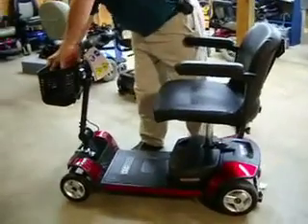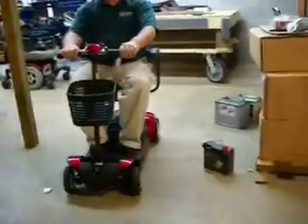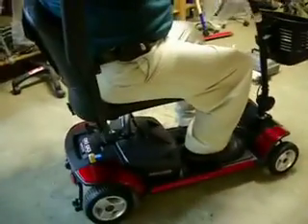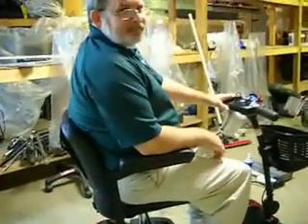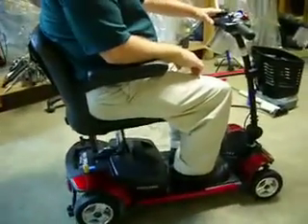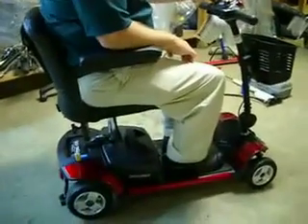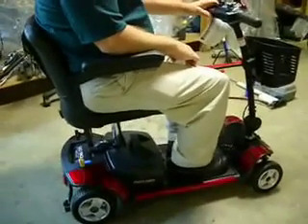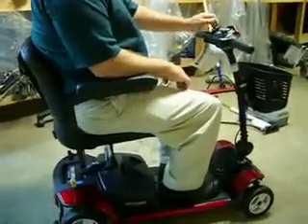So you've just seen us break down a Pride Mobility Go-Go Traveler scooter. Bobby's going to drive it a little bit to show you how easy that was — something that you can put in and out of your vehicle. It's great for somebody who maybe has general arthritis and has a caregiver to help, or somebody with COPD that can't walk a long distance. The Go-Go Elite Traveler at ProTech Medical — visit our website at www.ProtechDelivers.com.